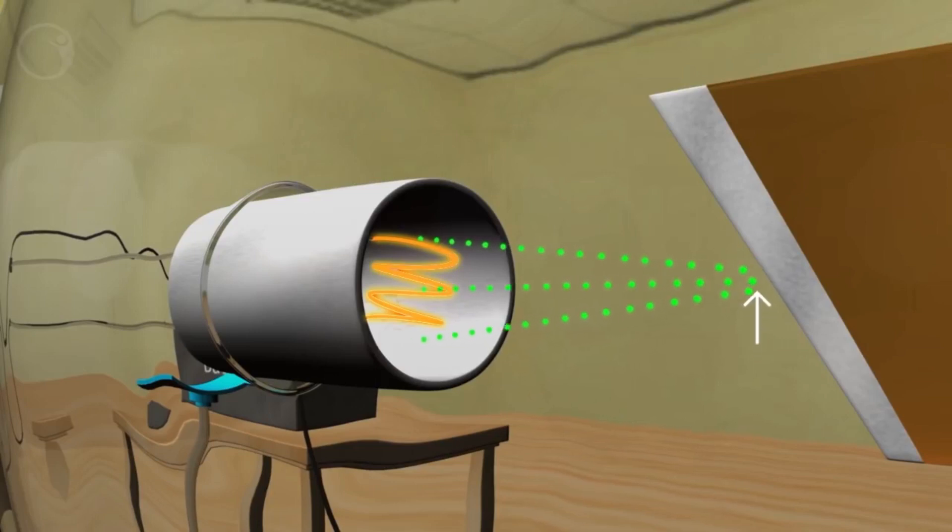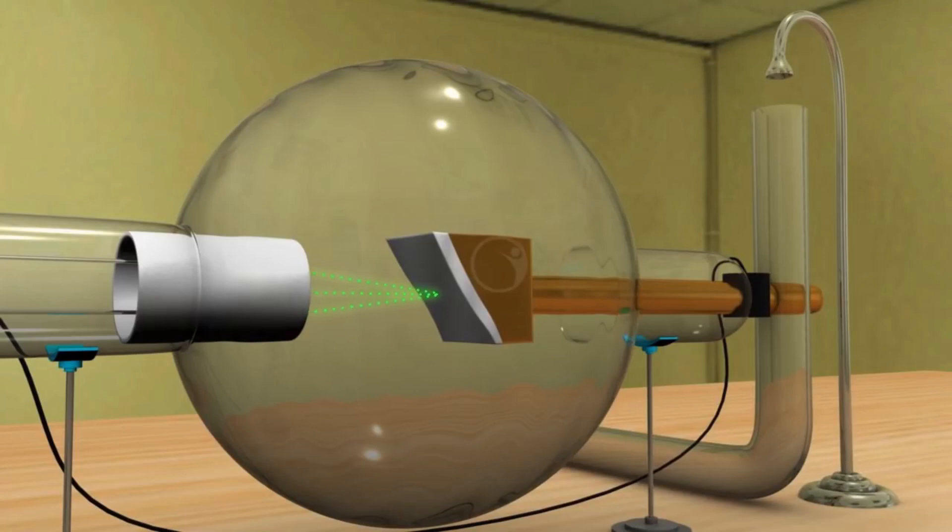Second, the large kilowatt rating provides high tube currents. These high tube currents allow the automatic brightness control system to select lower x-ray tube potentials on large patients, which improves contrast in the image and visualization of small vessels.